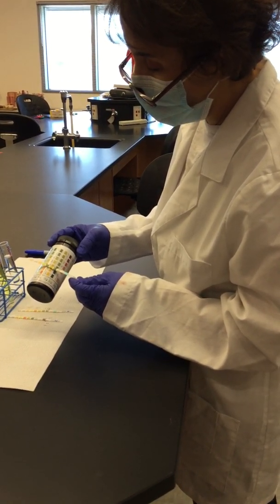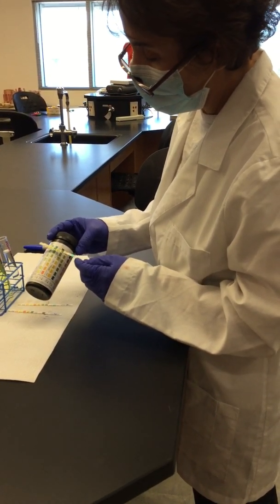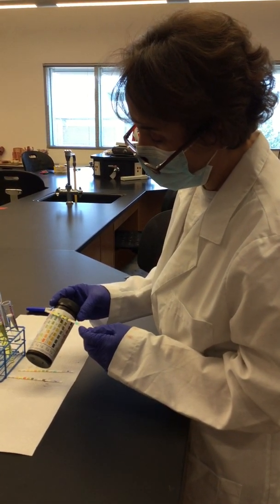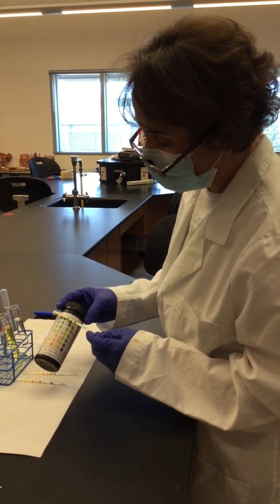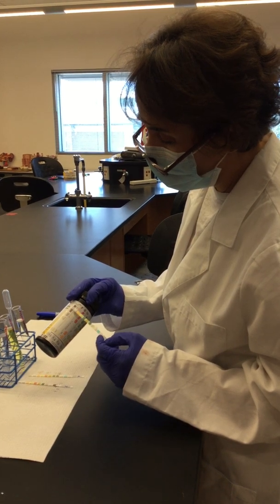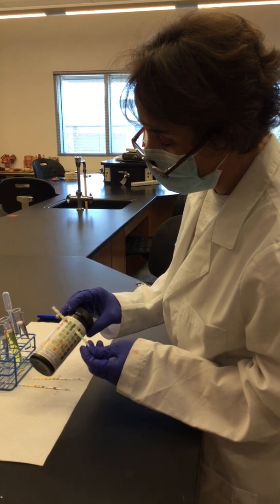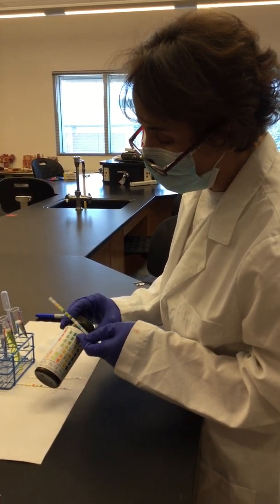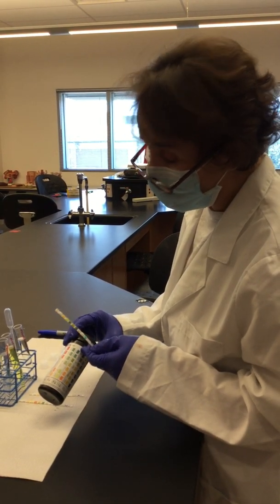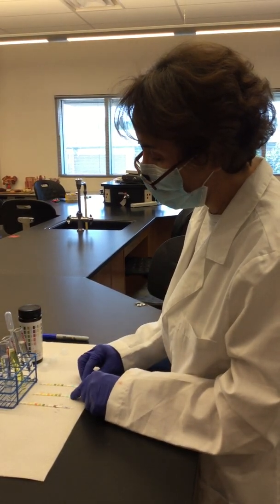So at some point in here, together with this pH, which is very basic, it can pinpoint to someone having glomerulonephritis and having this urinary tract infection that you cannot see here with the leukocytes, but it can be a urease-producing infection because you have this change of pH from acidic 5 to very basic. So remember, urease is the enzyme of bacteria that converts urea into ammonium.